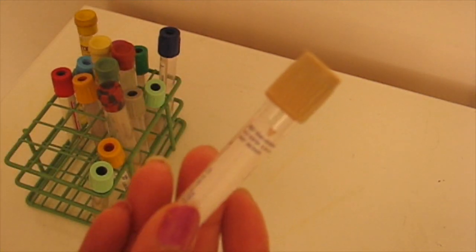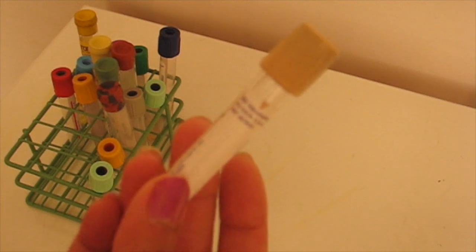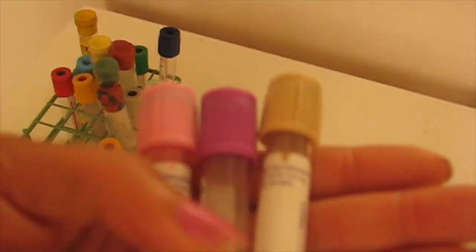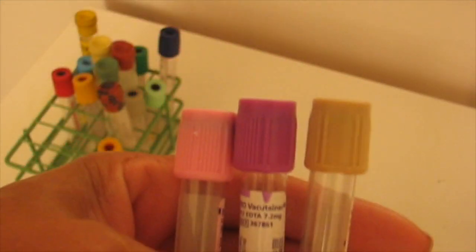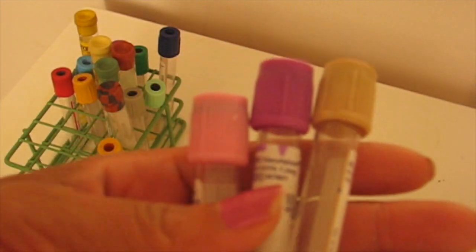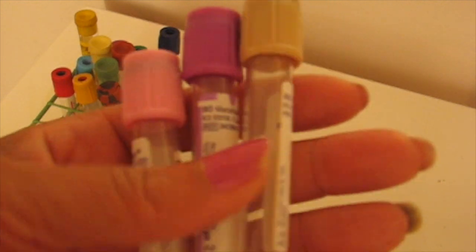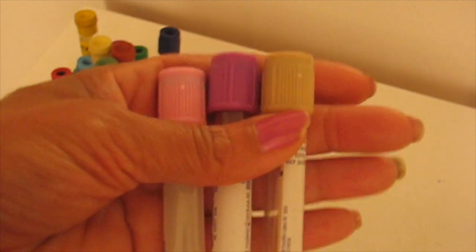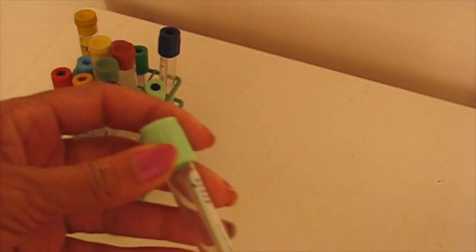In primary care internal medicine, the tan top is used mostly to detect if someone has been exposed to lead. Yes, it does have EDTA in it. I always like to remind you guys, no matter where you end up, please become familiar with the protocol in your facility.